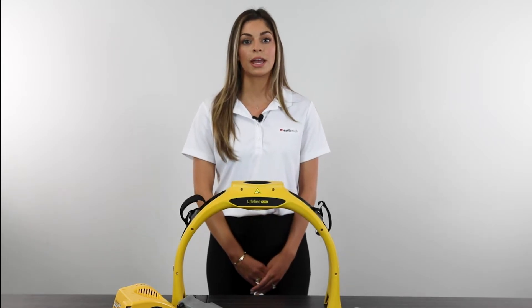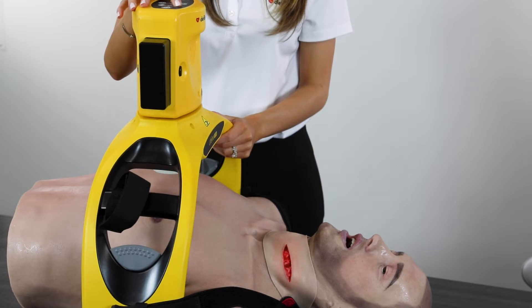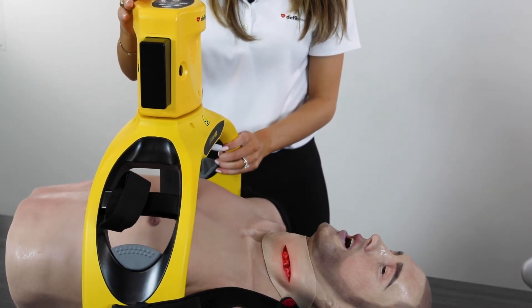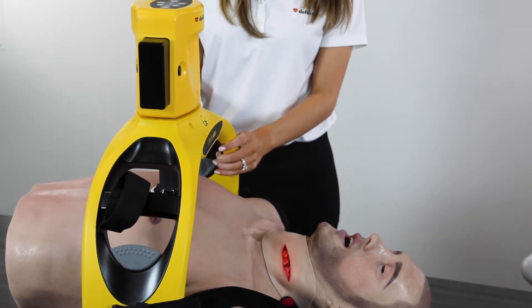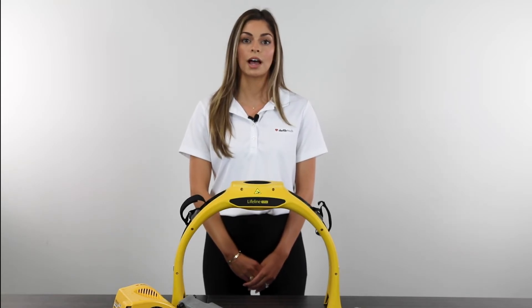This unit is tailor-made to fulfill any protocols for various medical requirements and issues. It provides continuous CPR care or pauses for breath, whichever the healthcare professional deems necessary. To ensure the protocol is followed, the device also chirps and flashes an LED between compressions to allow for breaths.